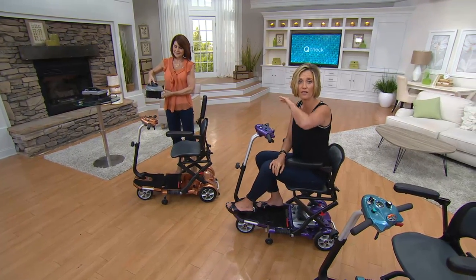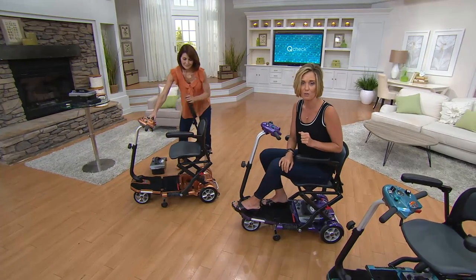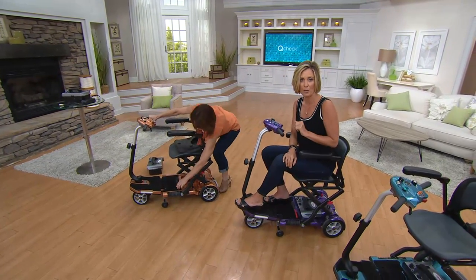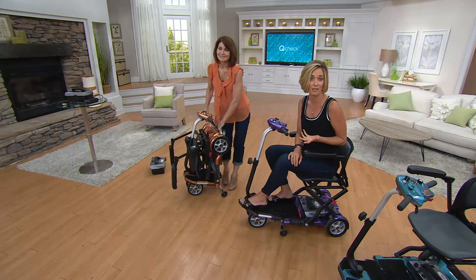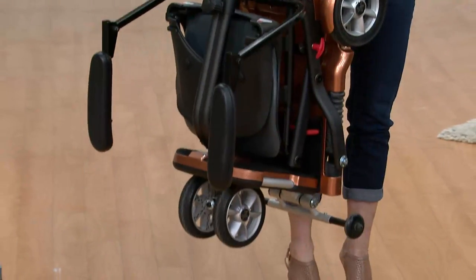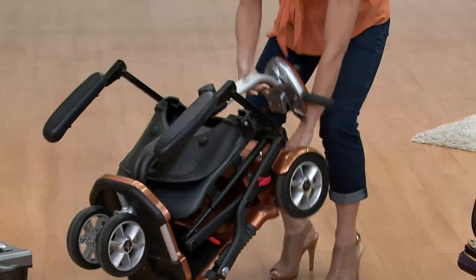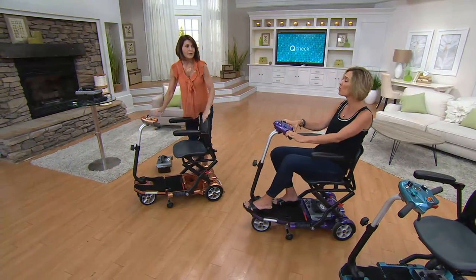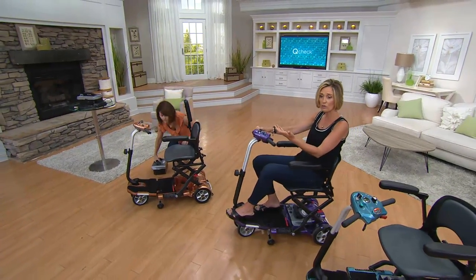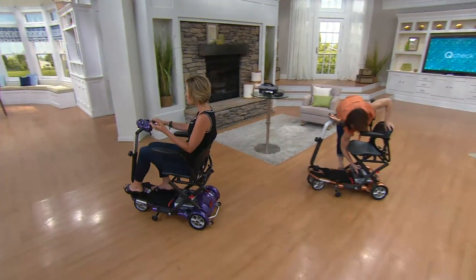The blue is getting limited — there will be no more at this price. Today it's a hot pick, so it's on six easy payments. You've got 30 days to make sure it's a part of your family, to love it or return it. And it's not just about getting around — it's about sitting too. You have your own seat if you're able to go to a game and watch the kids or grandkids play.